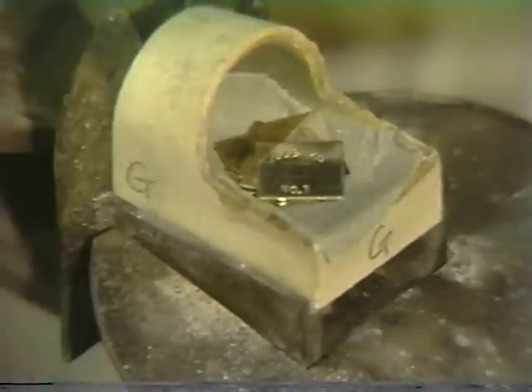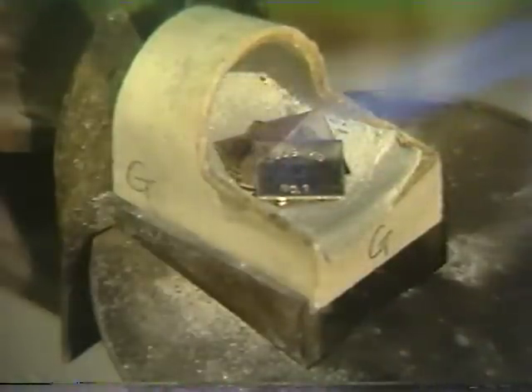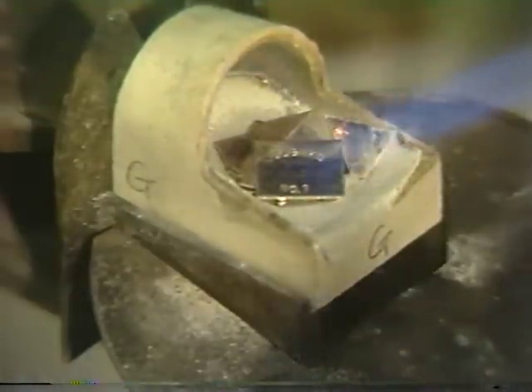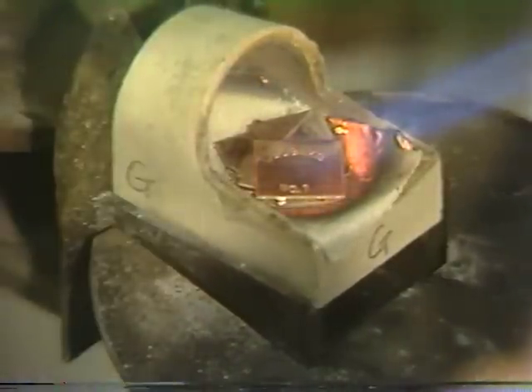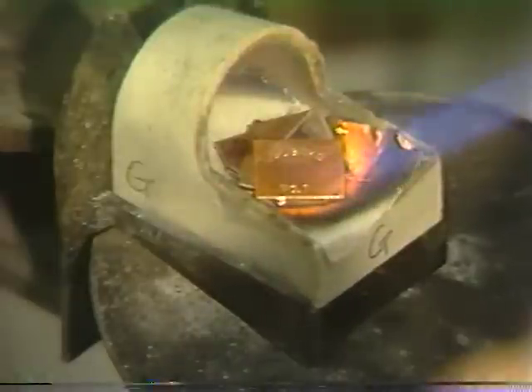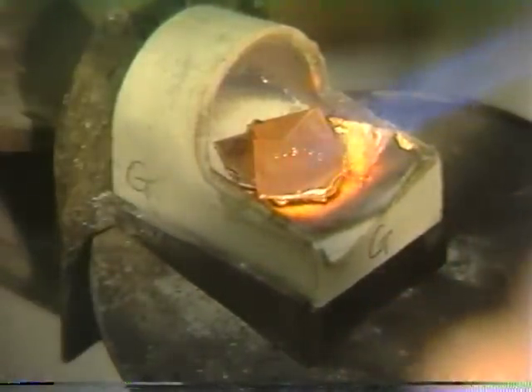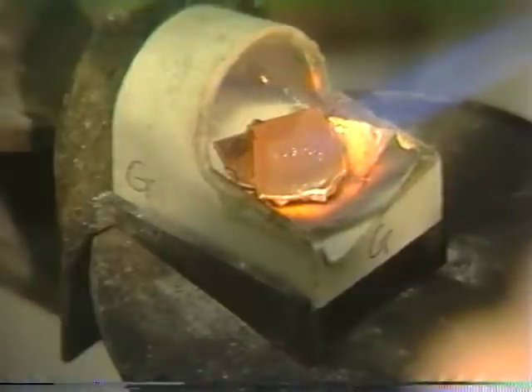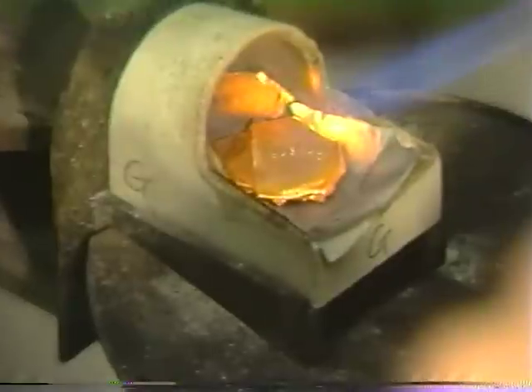The gold has been placed on an asbestos liner to assure a clean melt. A properly adjusted casting flame is used to melt the alloy, directed for the most efficient heating rate. If you see a black dot, you're too close — back off a little and utilize the reducing portion, or the blue tip of the flame, to get optimal efficiency.